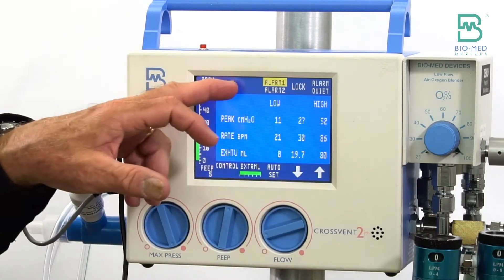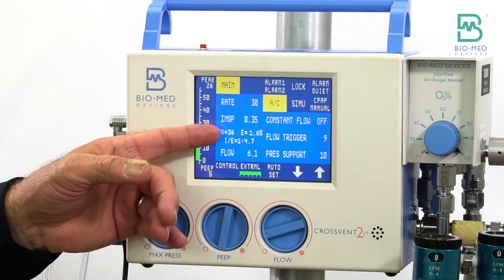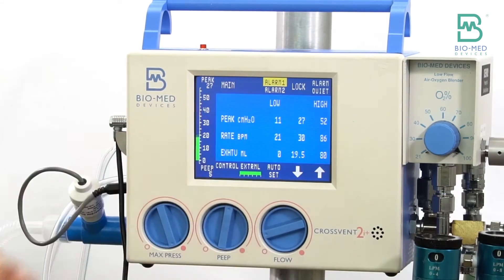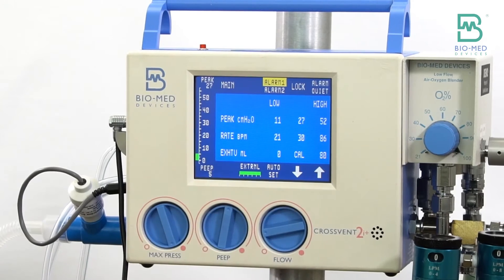So in this case, 36 is getting me 19-20 back from exhale tidal volume.